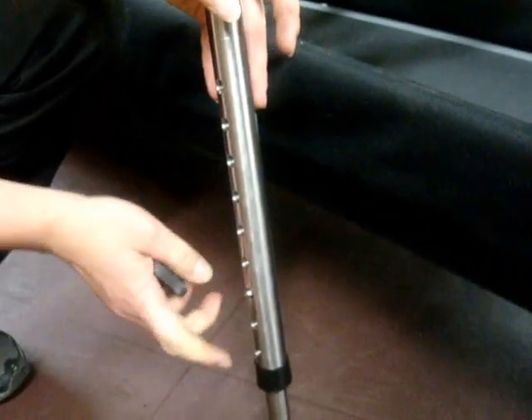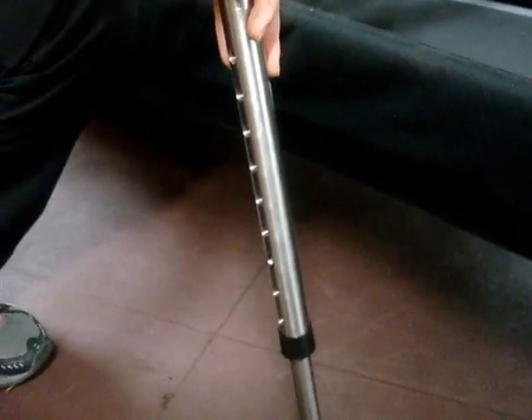When I put it down now it's going to be offset just a little bit until I can get all four legs adjusted accordingly. So we're going to go through and make all four legs the same height.